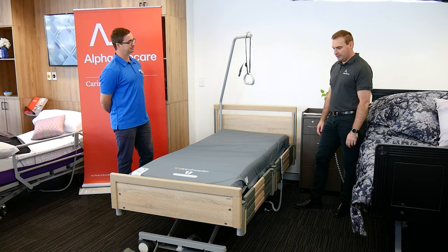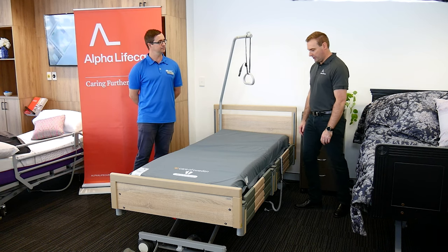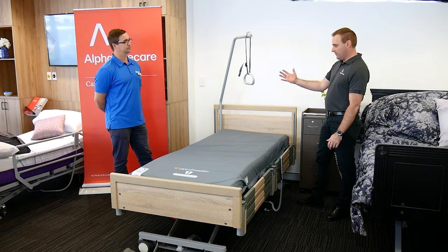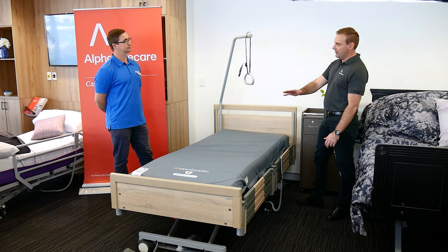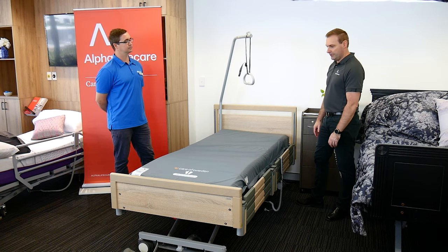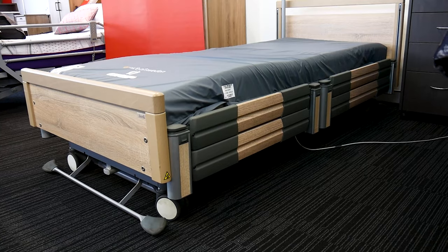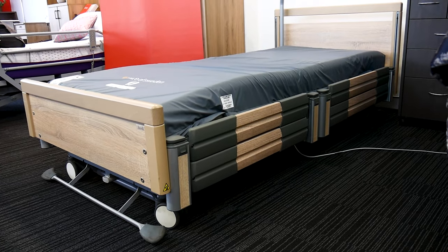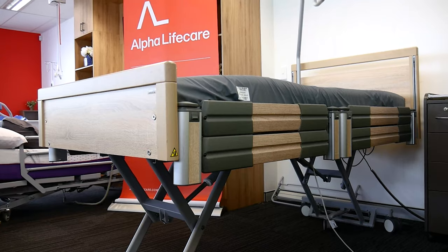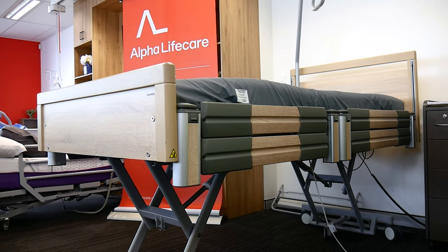Today we have the BOC 1580 height adjustable bed. It is a four-section bed, meaning we have the backrest and the knee break to position the person and the patient wherever they find it best. The 1580 means that it goes down to 15 centimetres and it goes up to 80 centimetres, so we've got a great height range.